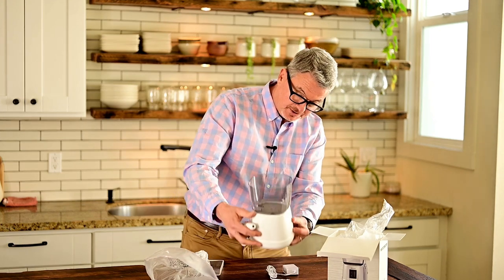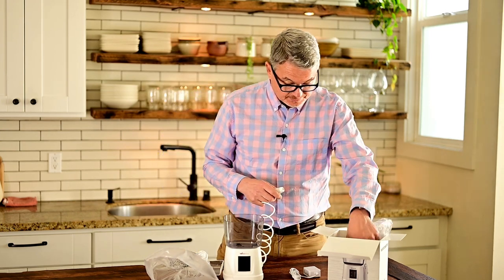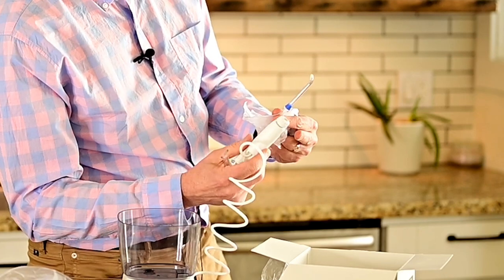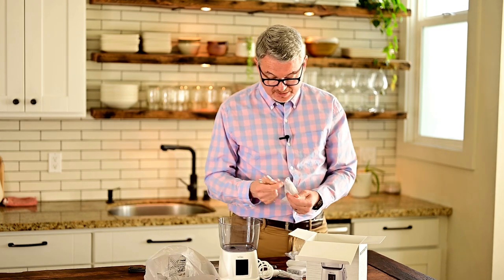Here's the charger. Essentially you've got a little readout here — I'm not sure what that does yet, but it's probably very similar to Waterpik. Where are the tips? Here they are. Pick the right tip. This is the generic tip right here — it's just slightly angled with a mildly sharp tip. There's something that looks like a tongue scraper. All the tips are generally about the same; they're color coded, and it has to do with how much water comes out of the tip, which determines a lot of the pressure. I would always start off with slow pressure — it is adjustable. Here is the on-off switch. The pressure switch — it could be that you have to touch the screen here. I'll plug it in and show you later.